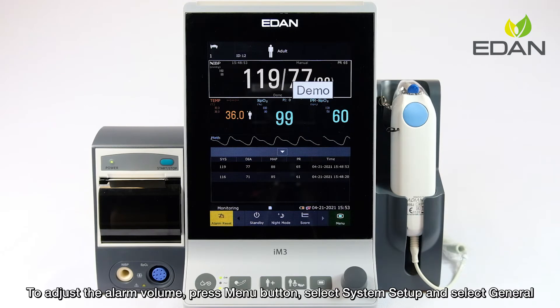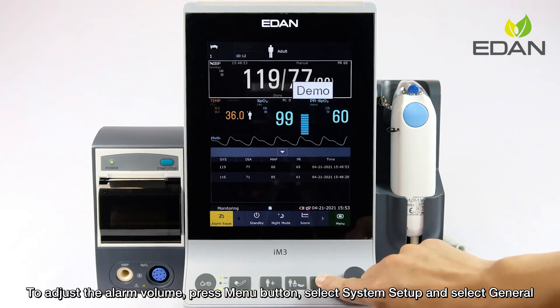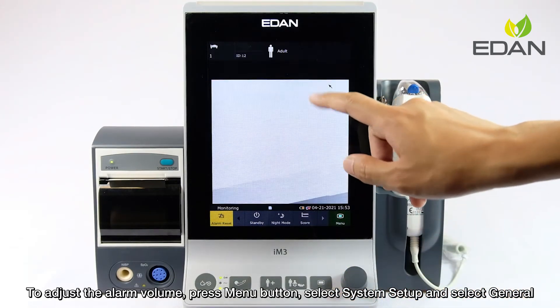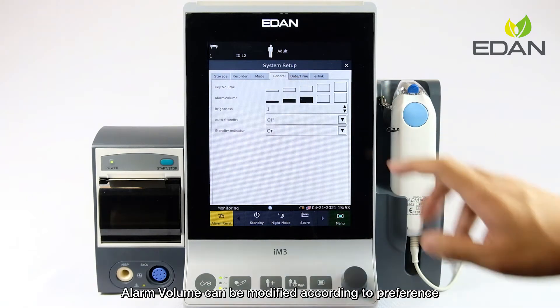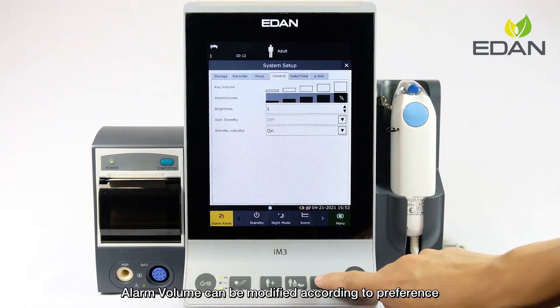To adjust the alarm volume, press the menu button, select system setup, and select general. Alarm volume can be modified according to preference.